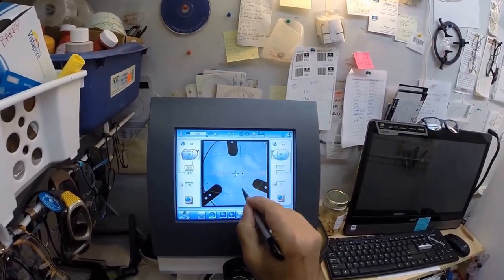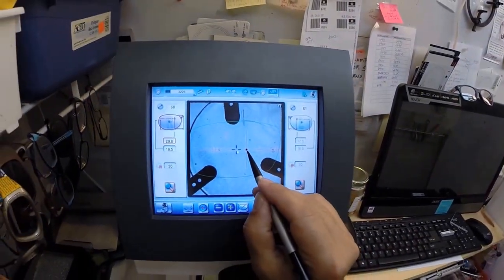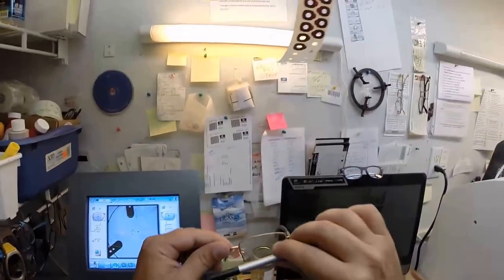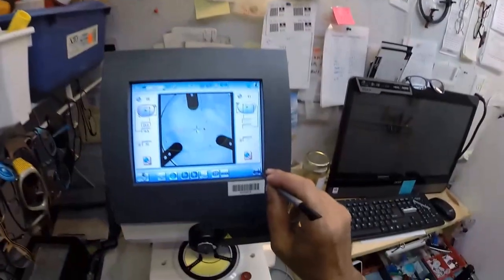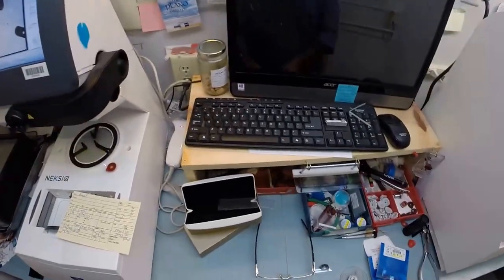The geometric center of this frame is where that blue cross is. It does not even matter because it is plano, I can move it anywhere. But for the sake of argument, I am going to do it the way that I have always been trained. The blue cross is the geometric center of your frame. If you were to measure vertically and horizontally, that blue cross would be in the center. The pupillary distance is right there, this orange line. I am going to put your optical center going there. The other two lines I put on there tell me that it is in there perfectly.